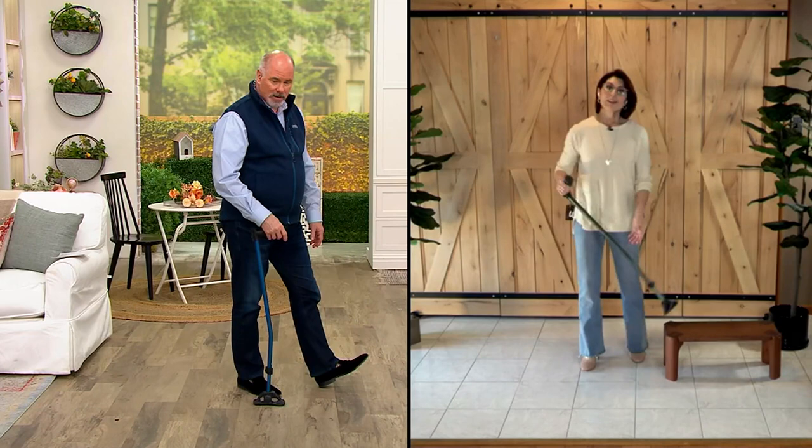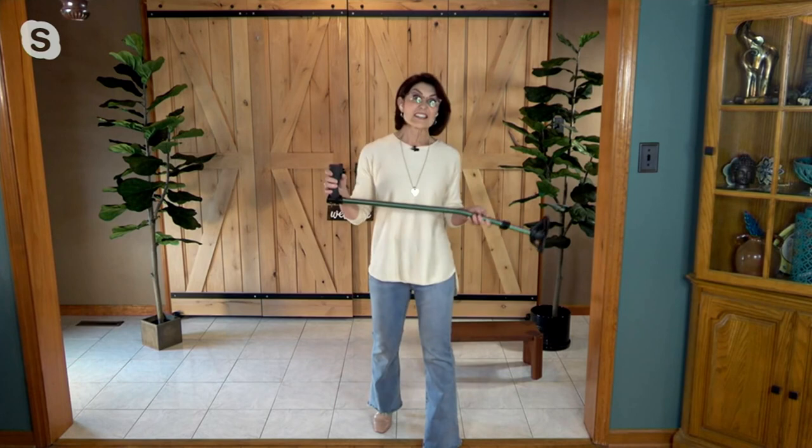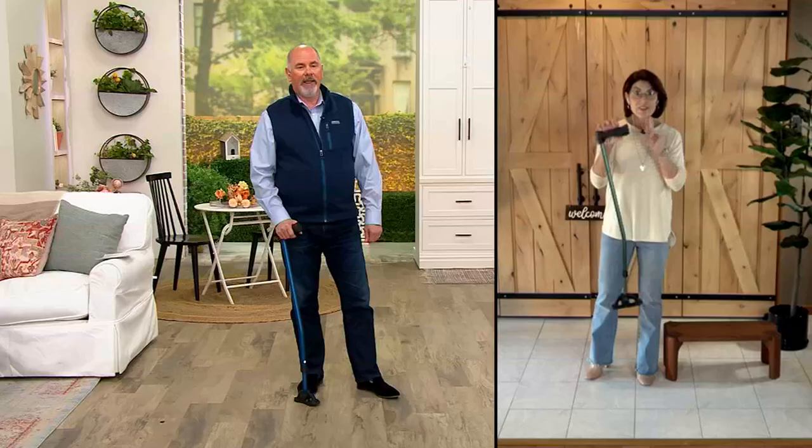You mentioned Will Scott — the gentleman who had 17 knee surgeries, a thousand days on crutches, walkers, or canes. No real innovation, didn't really help him. This honestly, in my estimation, is the best cane ever.